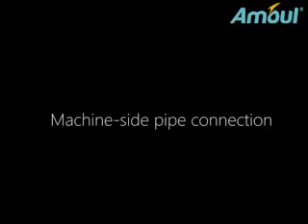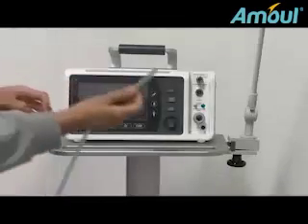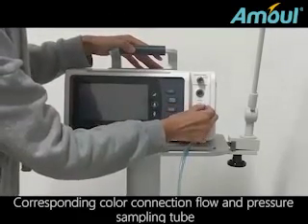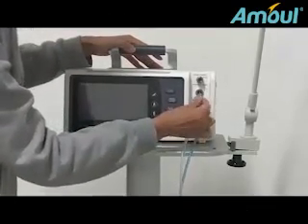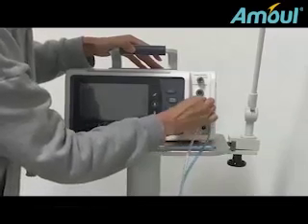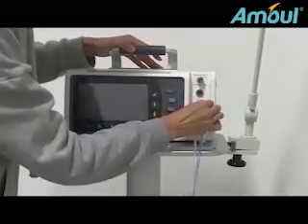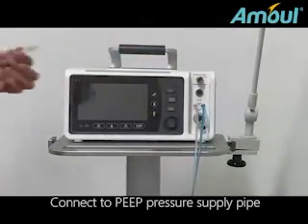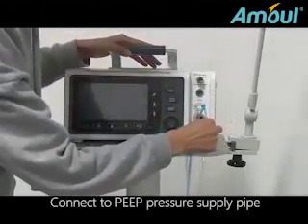Machine side pipe connection. Correspondingly colored connection of the flow and pressure sampling tube. Connect to the PEEP pressure supply pipe.